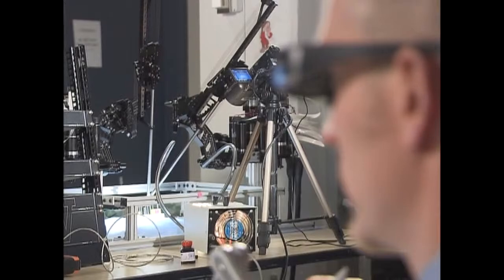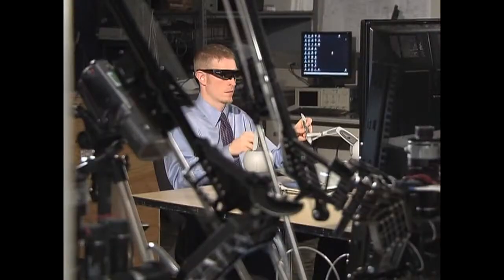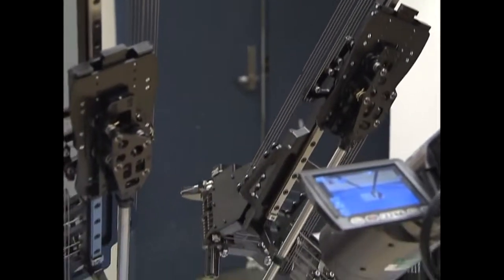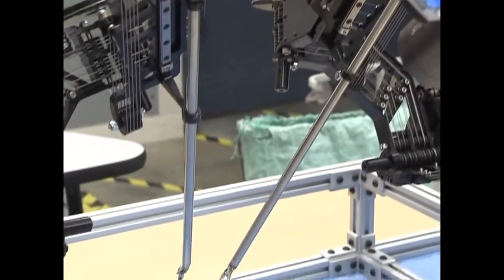Now, the use of robotics for surgery is not especially new. Commercial surgical robots are in common use. But the UW team realized Raven had advantages to researchers over commercially available models.